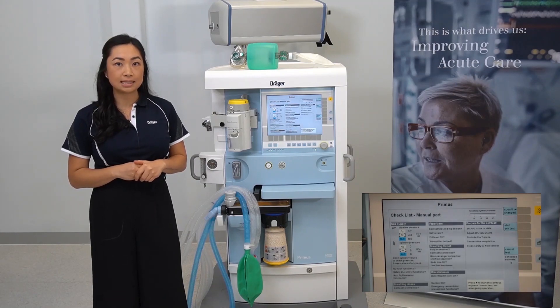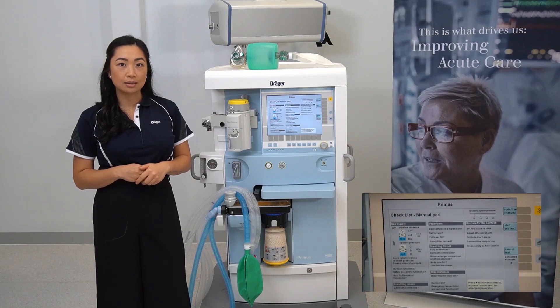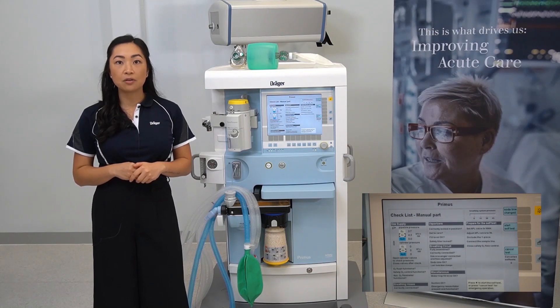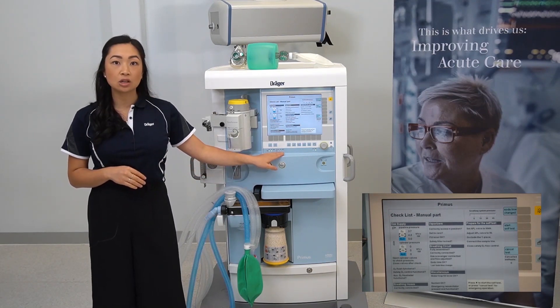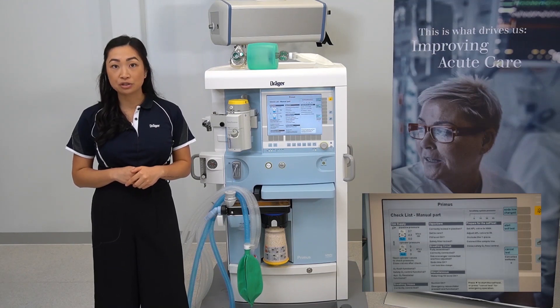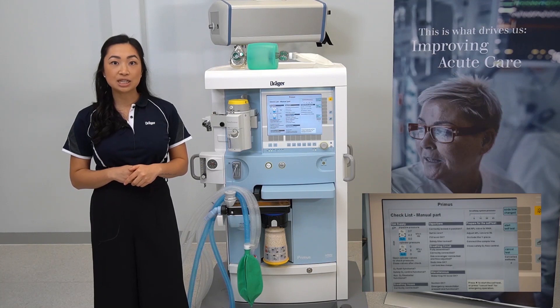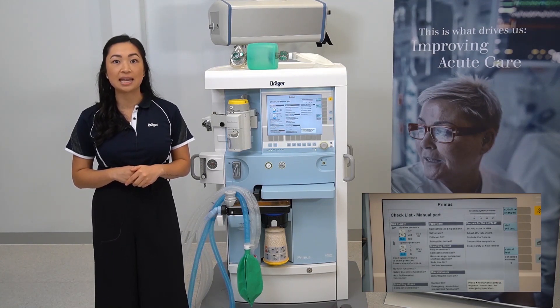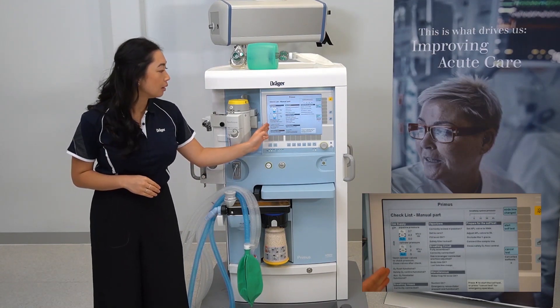If your pressure was low there would not be an LED light. To check your cylinder pressures are adequate, you will need to open up the valves on your reserve gas cylinders on the back of the machine. You will then see a corresponding solid LED light to indicate adequate pressure. If the pressure on your cylinders is low, the LED lights will be flashing.